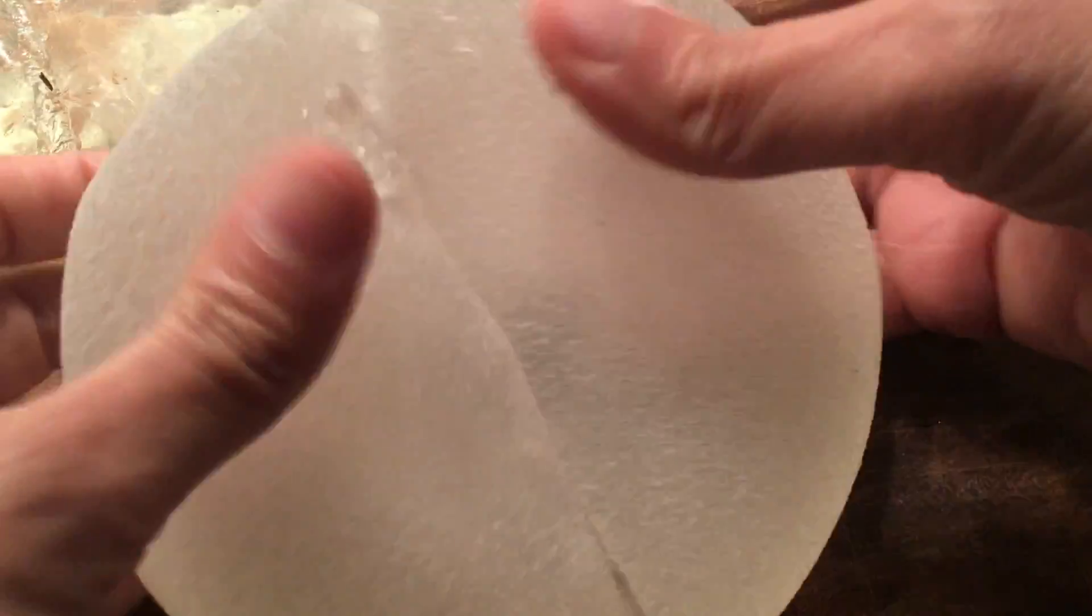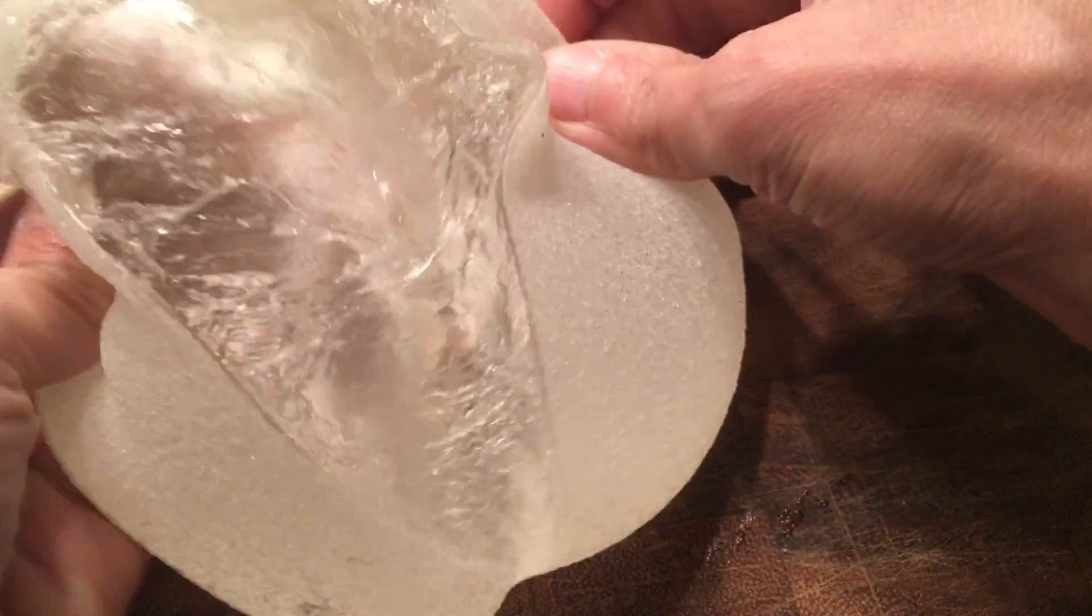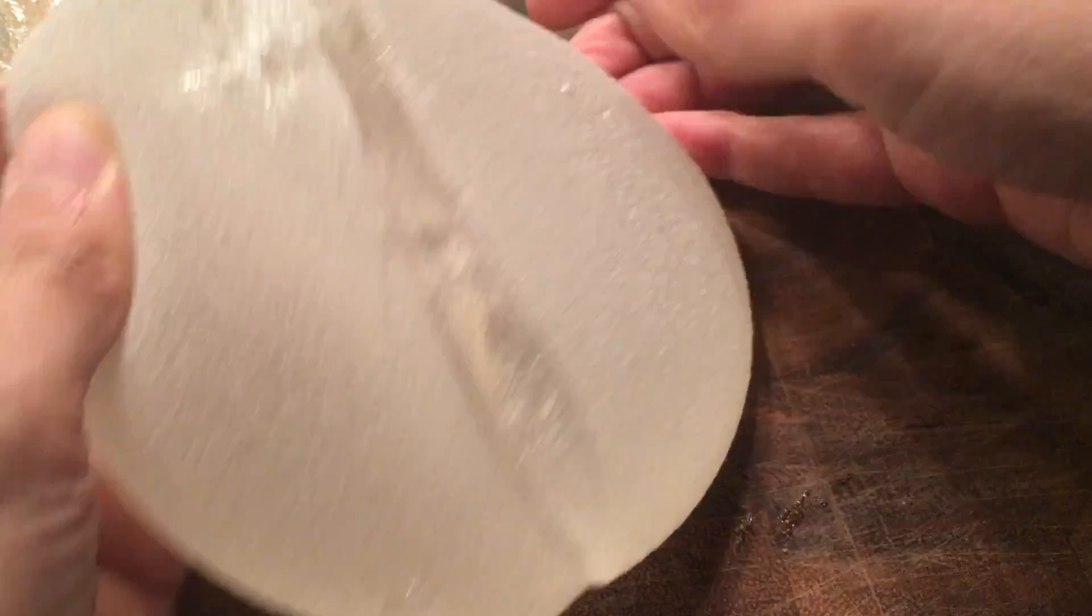So it's a traditional silicone, a bit more gooey. Again, not spilling out all over the place but definitely gooey. And this is the cohesive implant which holds its form much, much better.